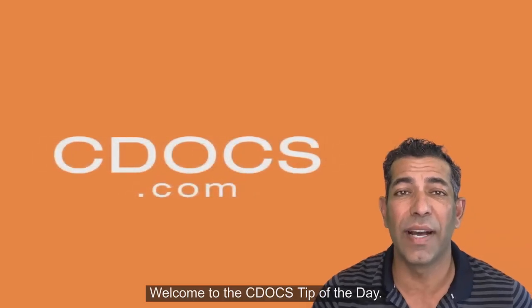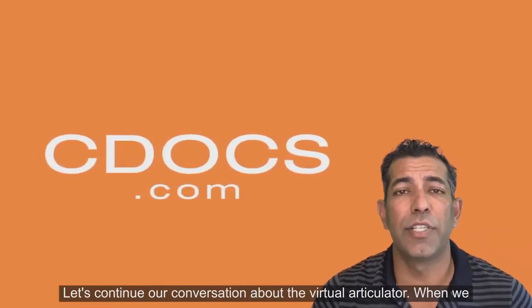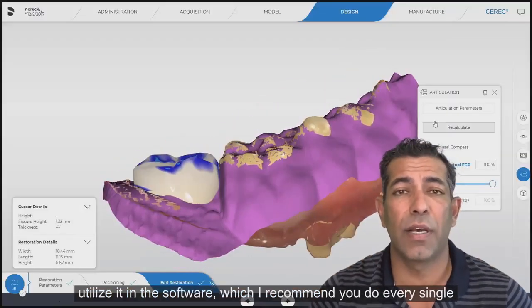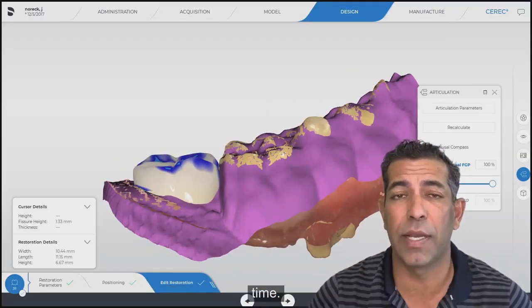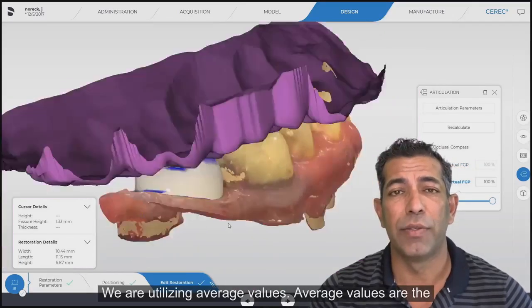Welcome to the C-Docs tip of the day. Let's continue our conversation about the virtual articulator. When we utilize it in the software, which I recommend you do every single time, we are utilizing what's called average values.